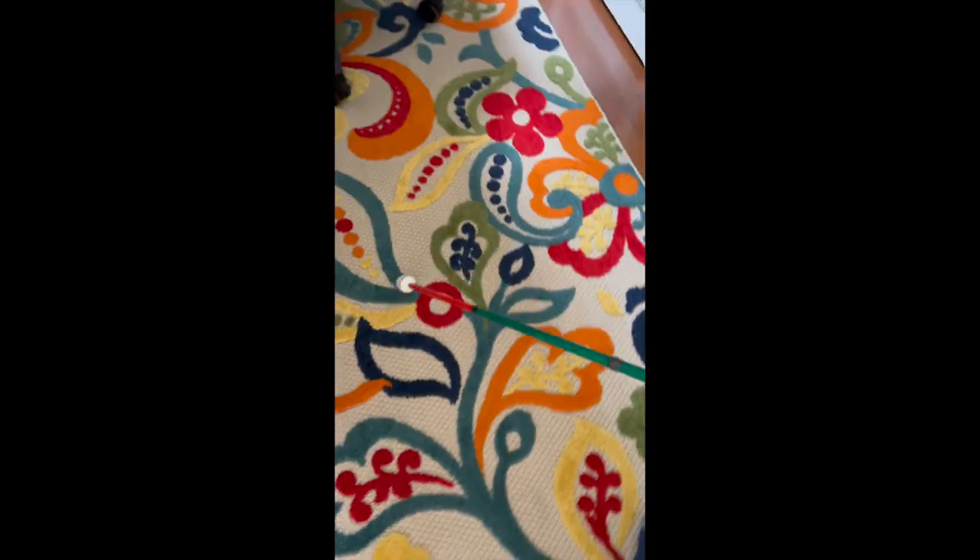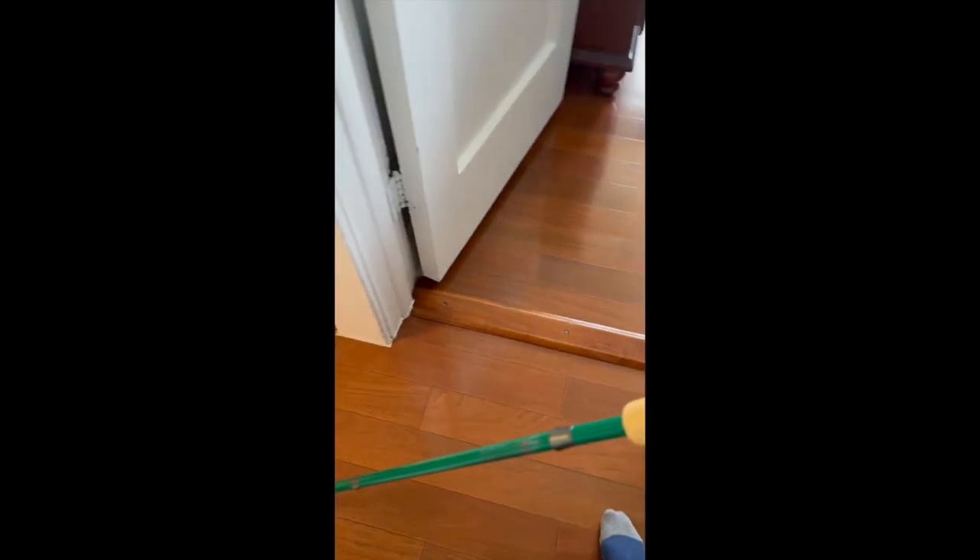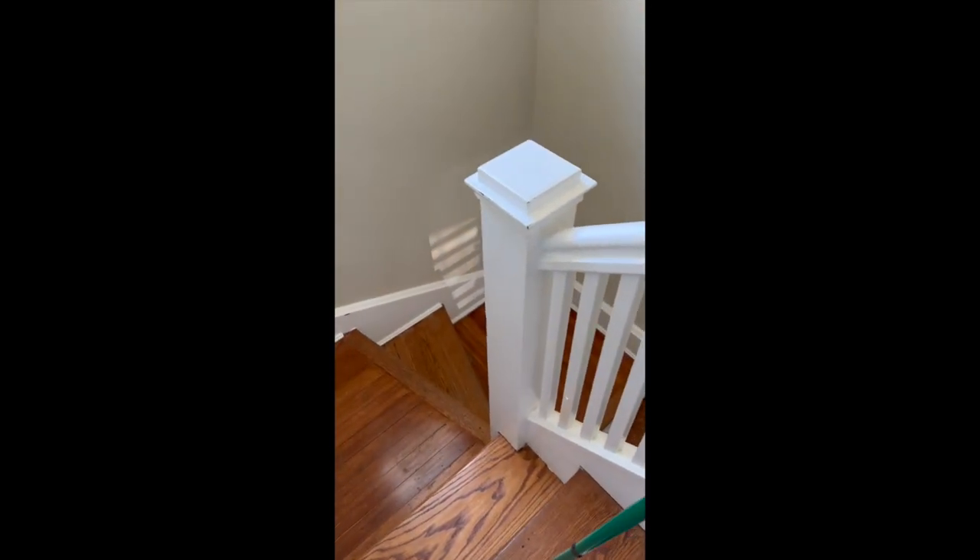Just previewing it — it's fire. It's a premium wood handle. It feels so cool. I love it. I'm going to try going downstairs, and I always have it on me now.